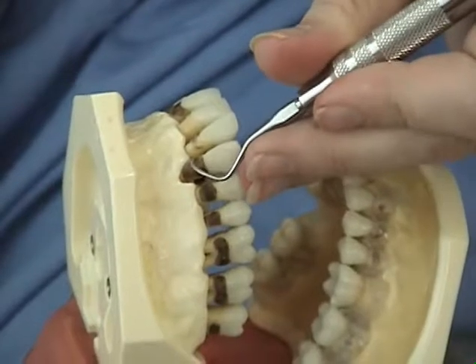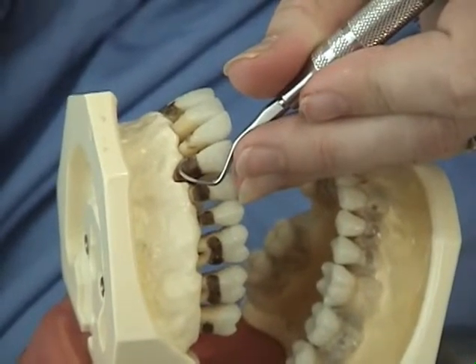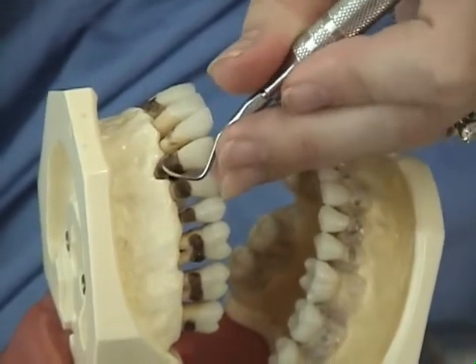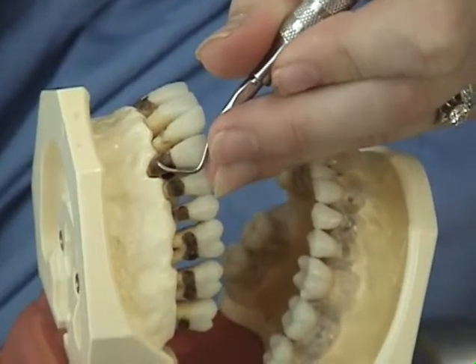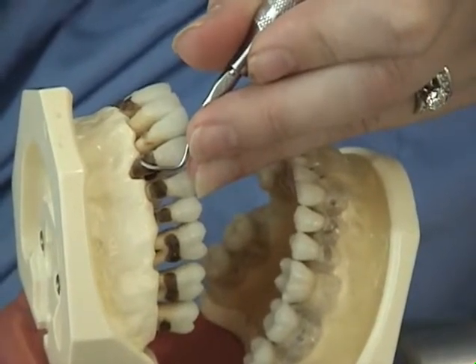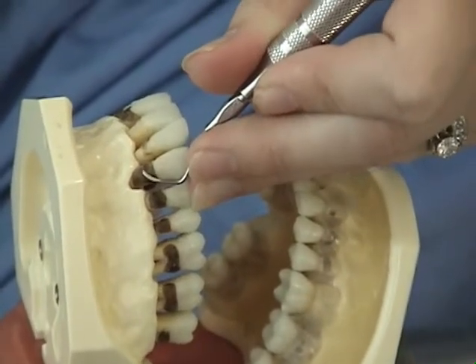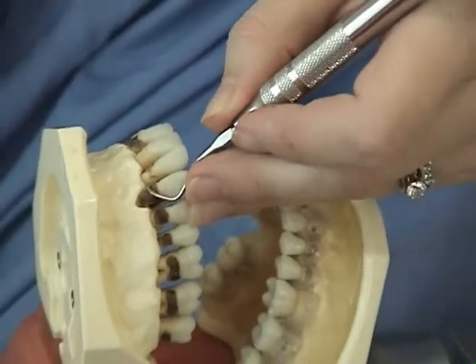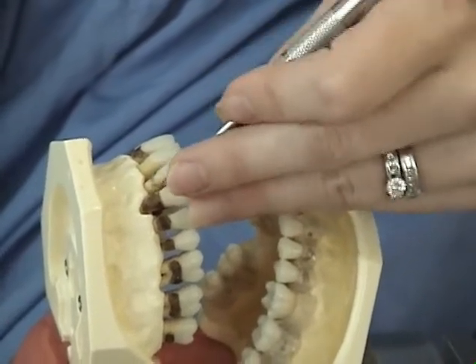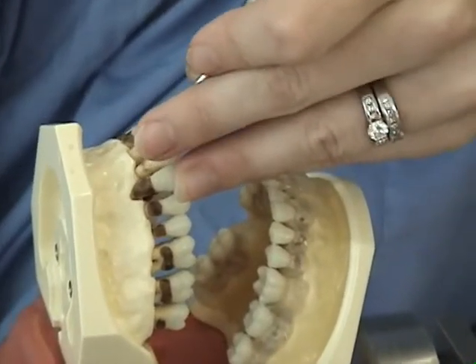Begin instrumenting the mesial half of the maxillary right canine from the facial aspect — the surface away from you if right-handed, toward you if left-handed. Gently insert the working end beneath the gingival margin with a closed 0 to 40 degree angle. Close the face by tilting the lower shank toward the tooth. Be sure the toe is starting at the midline of the tooth. Open the face and with a wrist rocking motion, continue overlapping strokes to the proximal surface. Roll the instrument handle and pivot on your fulcrum to maintain adaptation of the toe third. Continue to the next tooth until all surfaces toward you are completed.